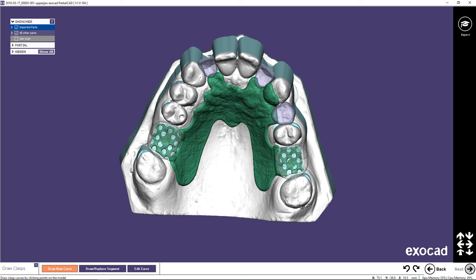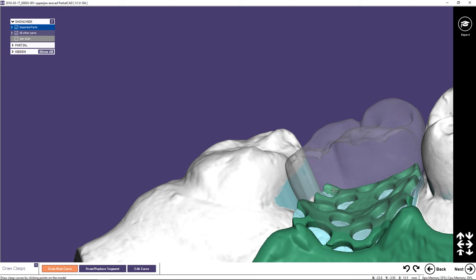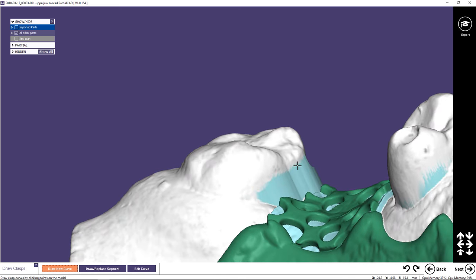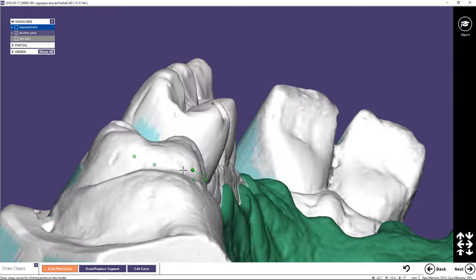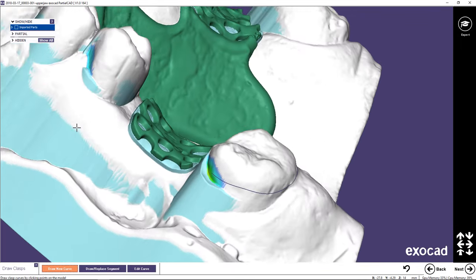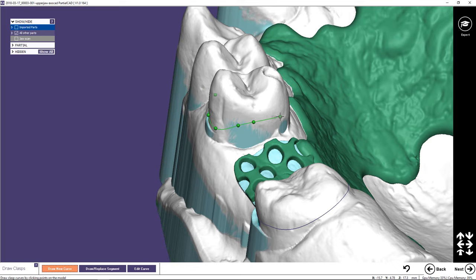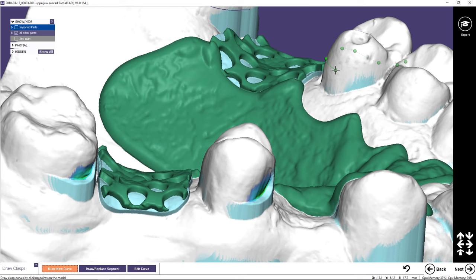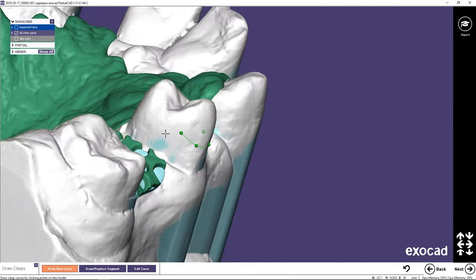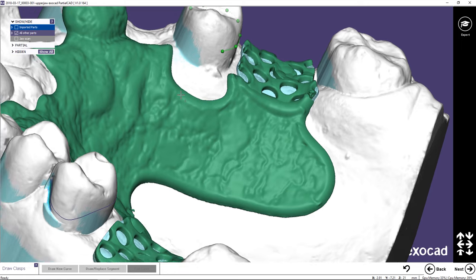Click Next to proceed to the Draw Clasp step. At any point in the design, the anatomic shapes of the tooth models can be hidden by unchecking the box next to the imported parts in the Show and Hide menu. Using the Draw tool, draw a line where the center of the clasp will be placed, working from one clasp end to the other. Double-click to complete a line — a clasp requires an open line. Don't be overly critical when drawing the curve; the placement and shape of the clasp can be changed when creating the clasp in the next step. You can also correct a point's position by clicking and holding while drawing.